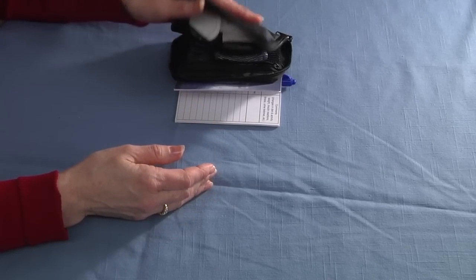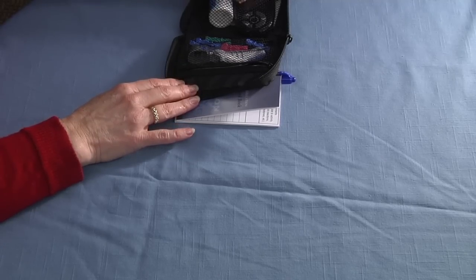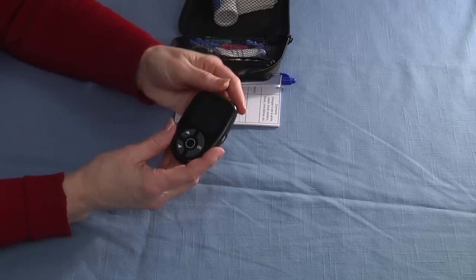Then you'll need to get your meter out. I've already set my meter up with the date and the time so it'll be ready to go.